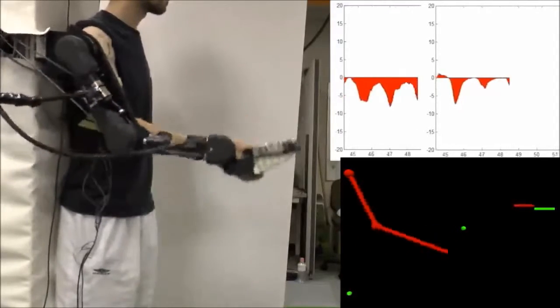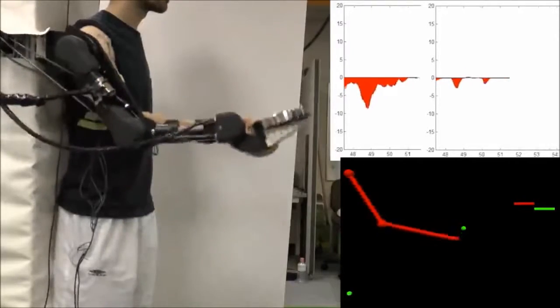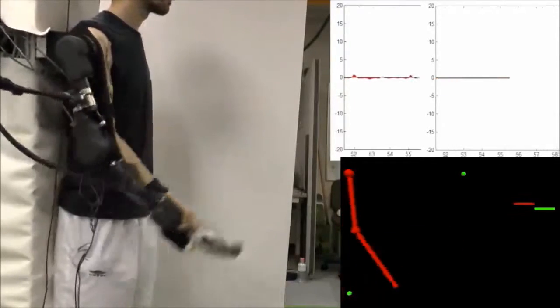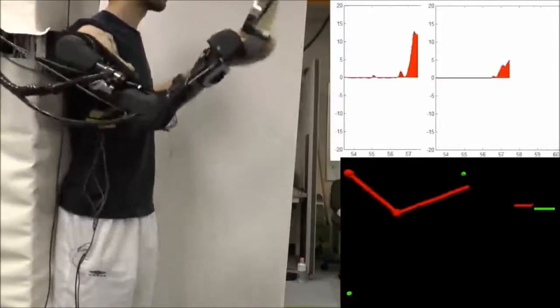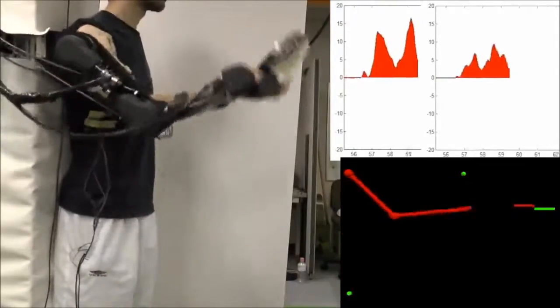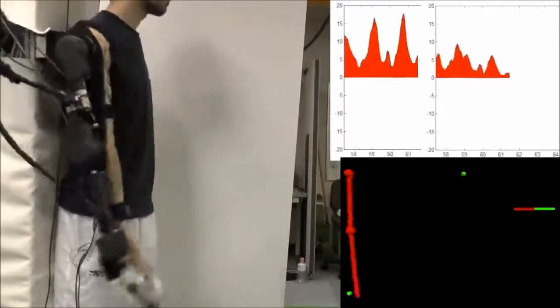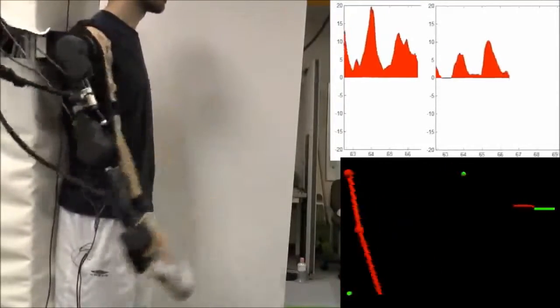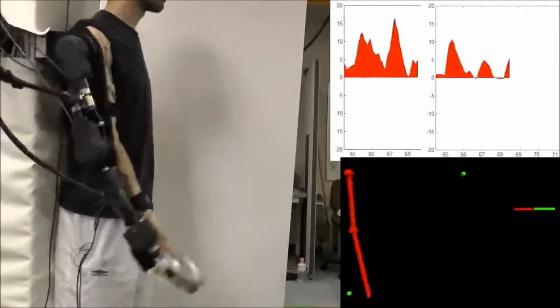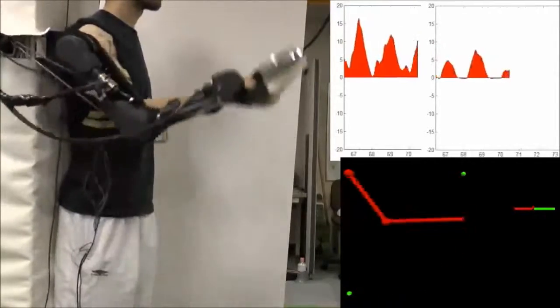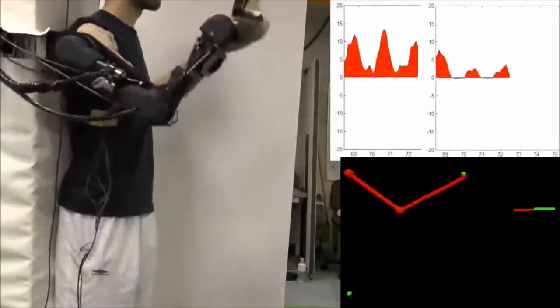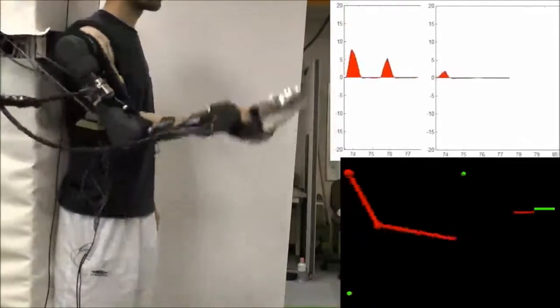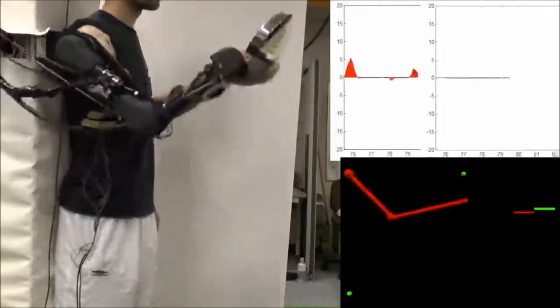The subject then extended the motion, first downwards and then upwards. The exoskeleton successfully adapted to the changes and moved without any effort from the subject.